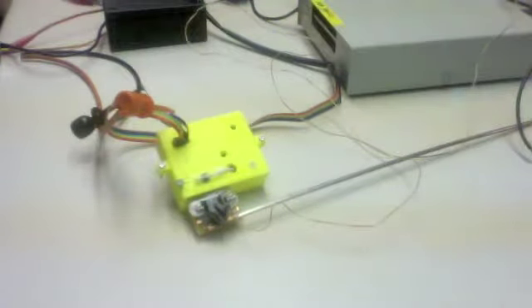It's also listening to the user switch to see if the user is trying to signal for a seizure. And every 5 seconds, for 1.5 seconds, it is sampling at 250 Hertz from the neural electrode, and then doing some processing on that to see whether or not a seizure is likely.